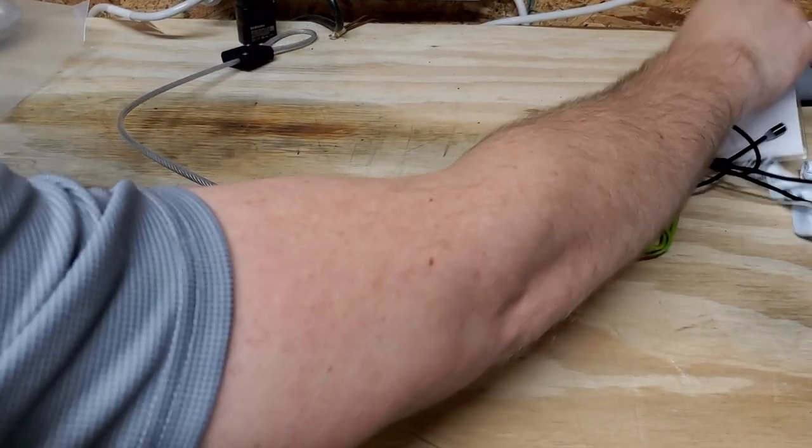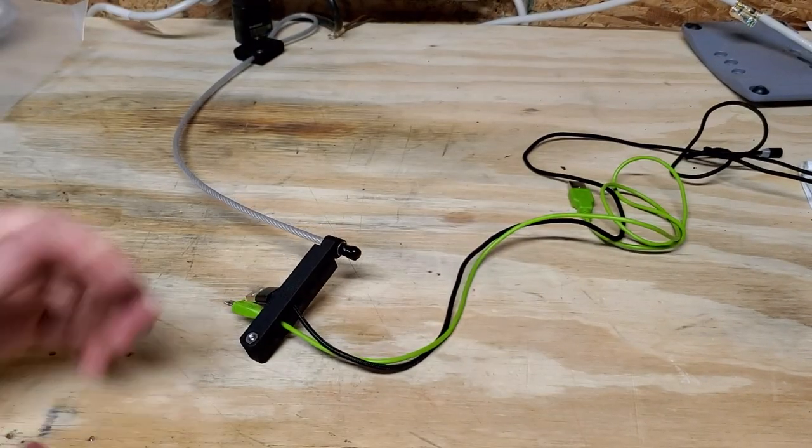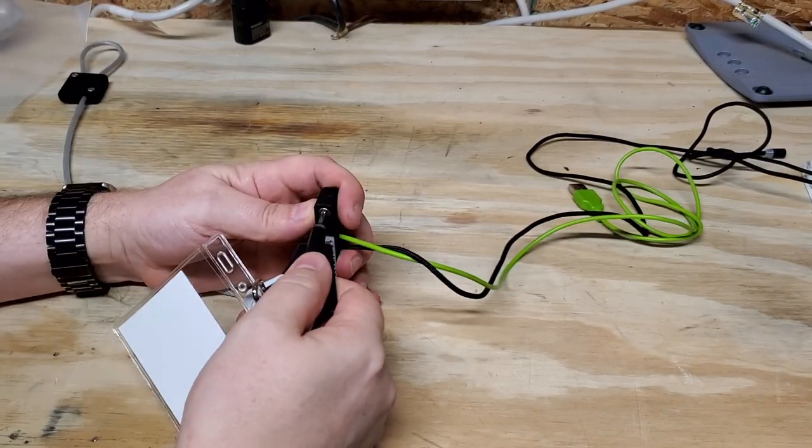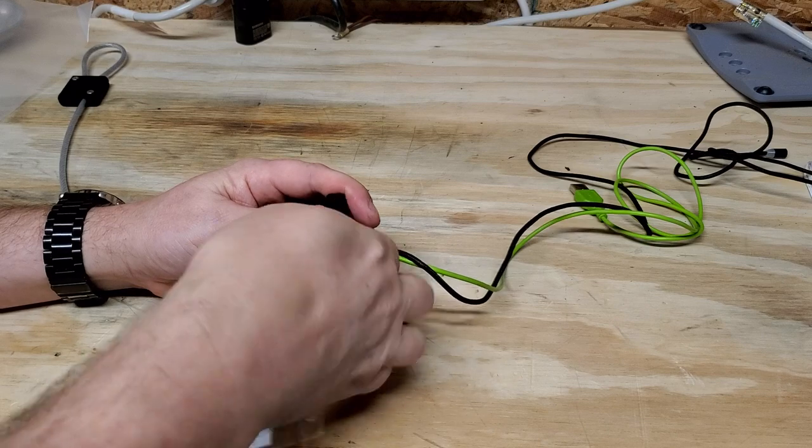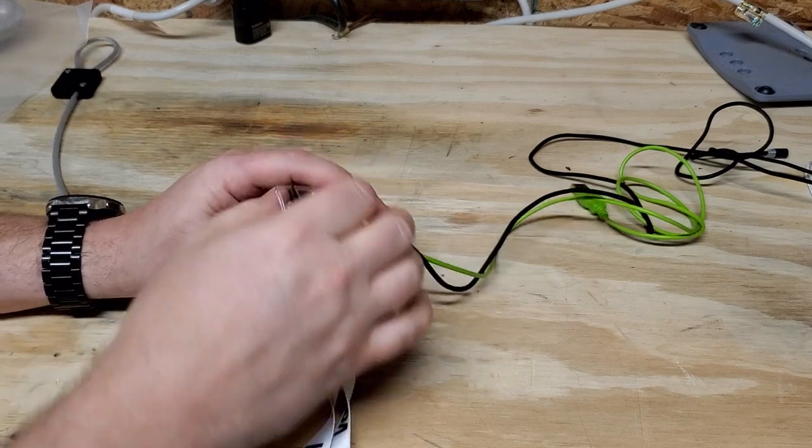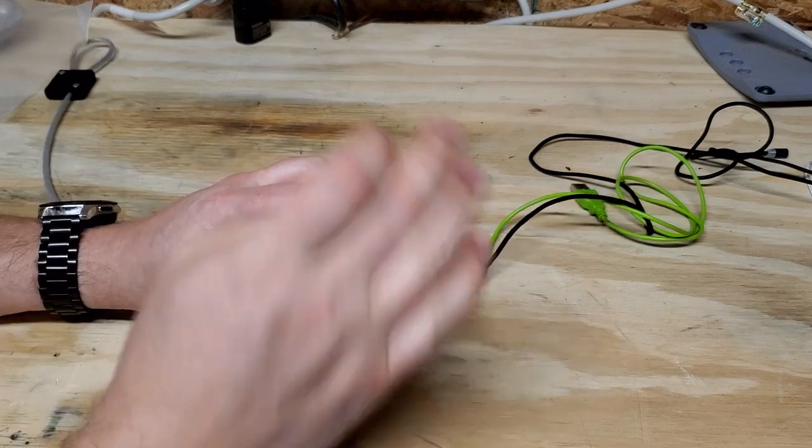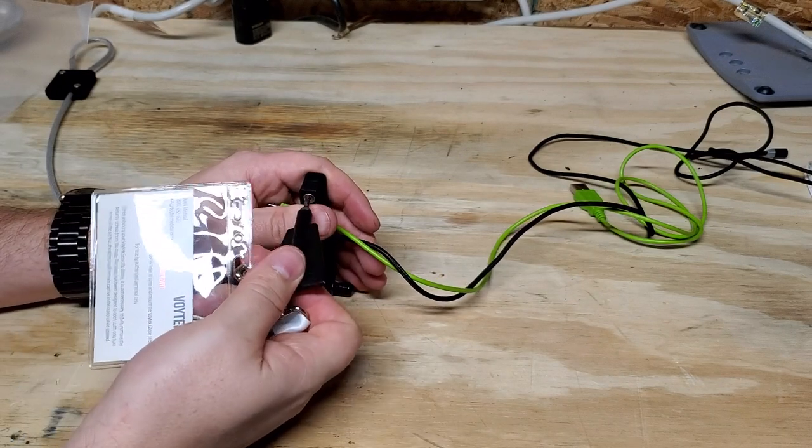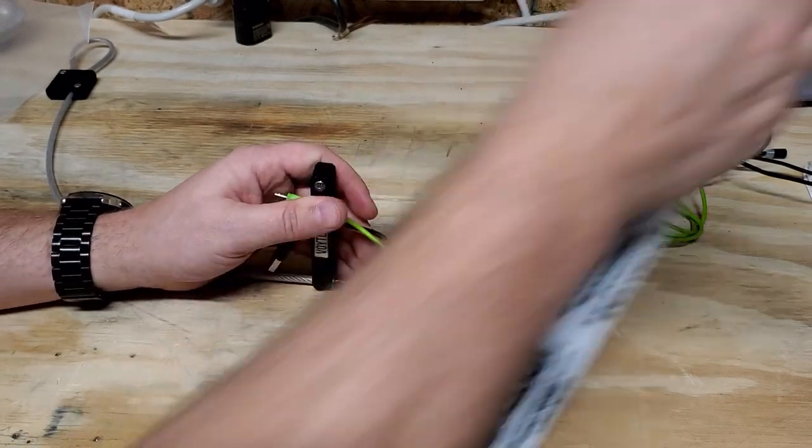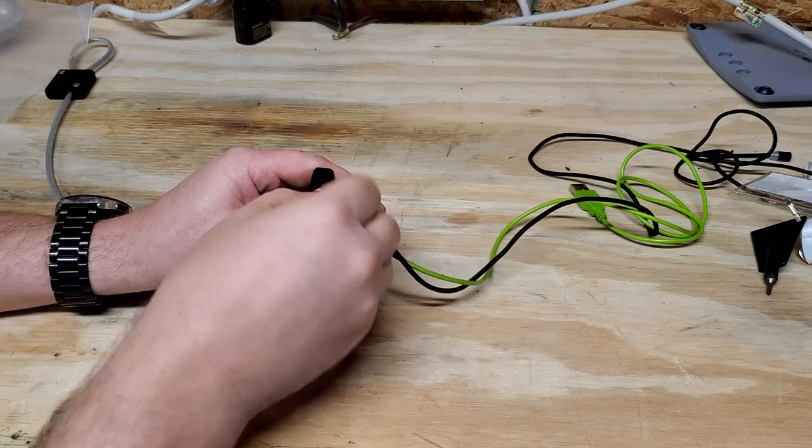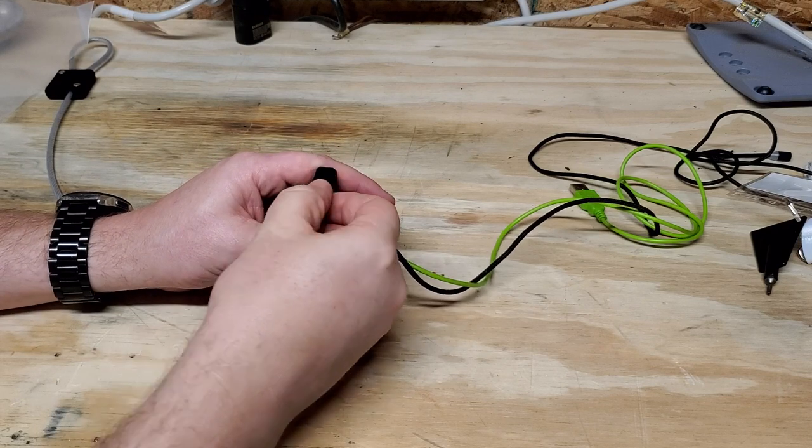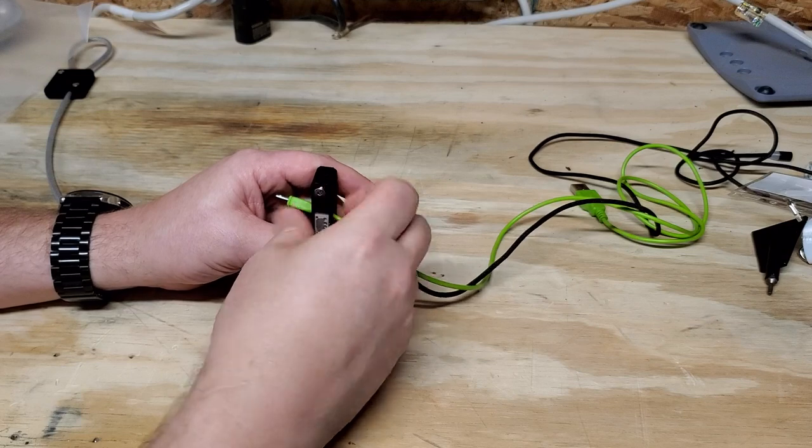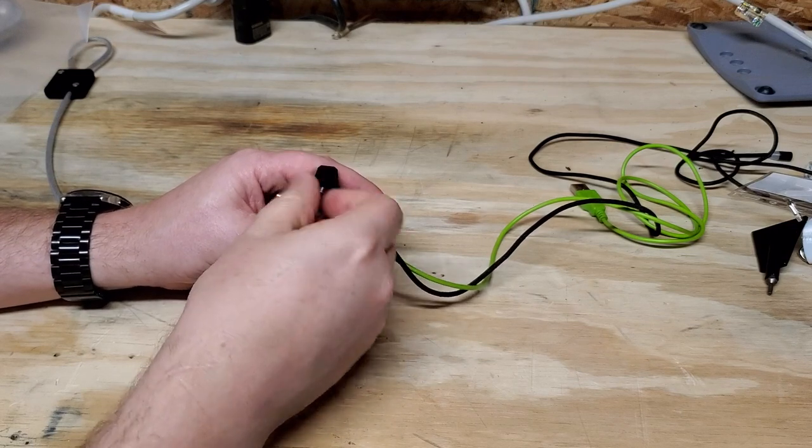I would be curious about what pricing is for these cables because I love when people lock down their patient monitoring cables. It makes Biomed's jobs so much easier and accountability is so much better at those hospitals because once cables start walking you don't know who to charge which department and it's just an absolute mess.